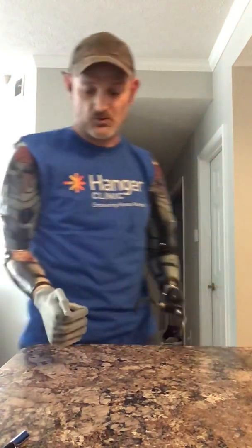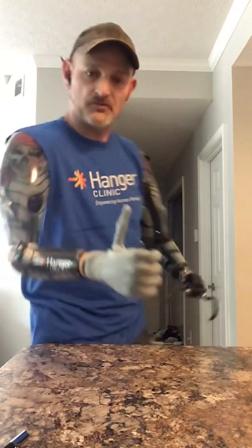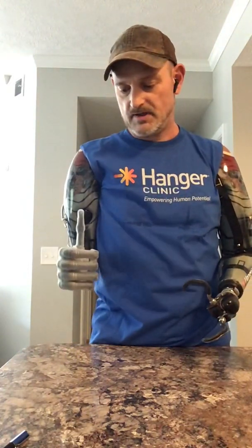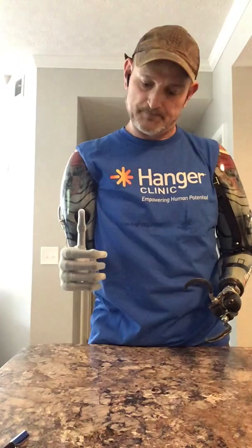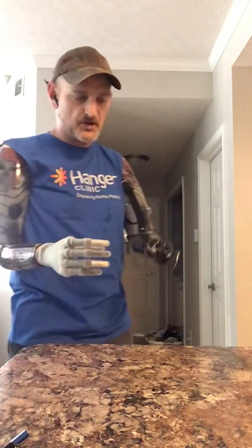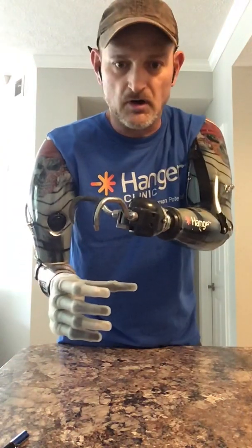I'm going to show you another gesture I've got in here, which I think is pretty cool — a little thumbs up. What's going on? Here we go. I'm going to open this back up. Now I'm going to do another gesture for you — this one is for holding a can, or a glass, or anything like that. Which I think is awesome.